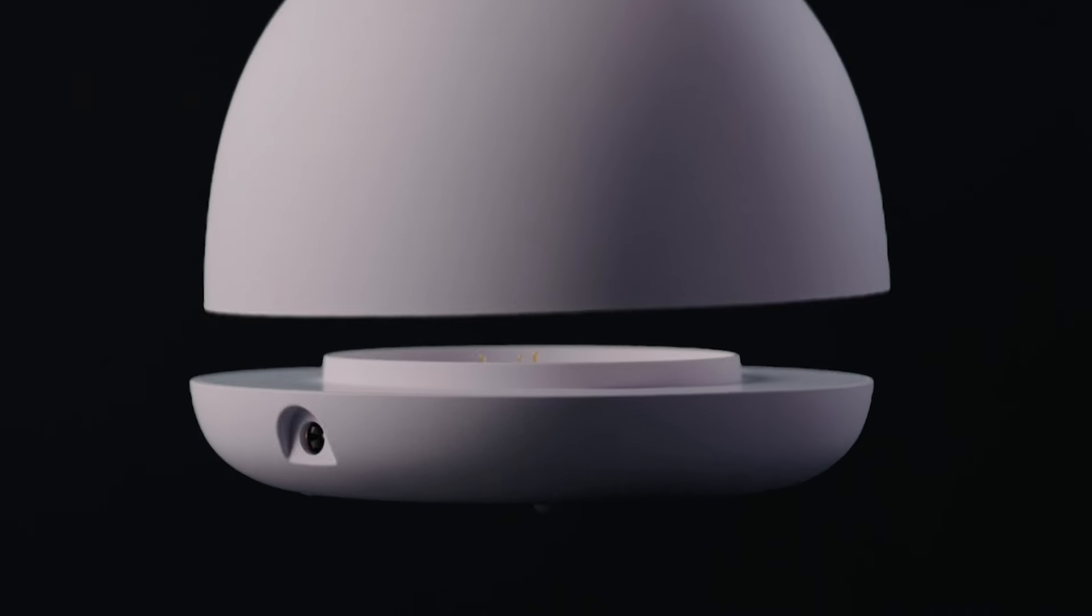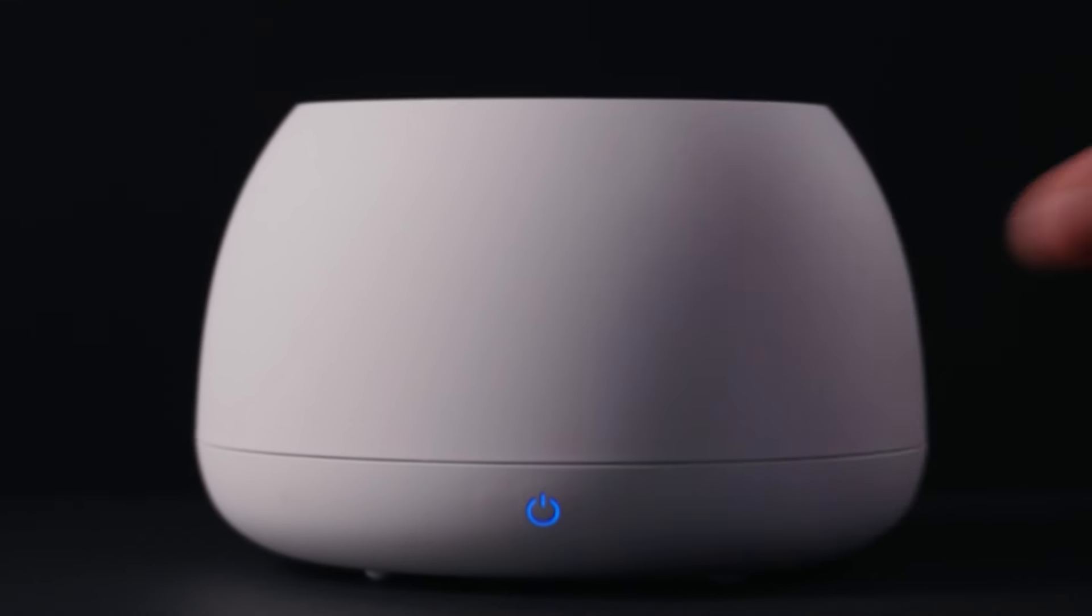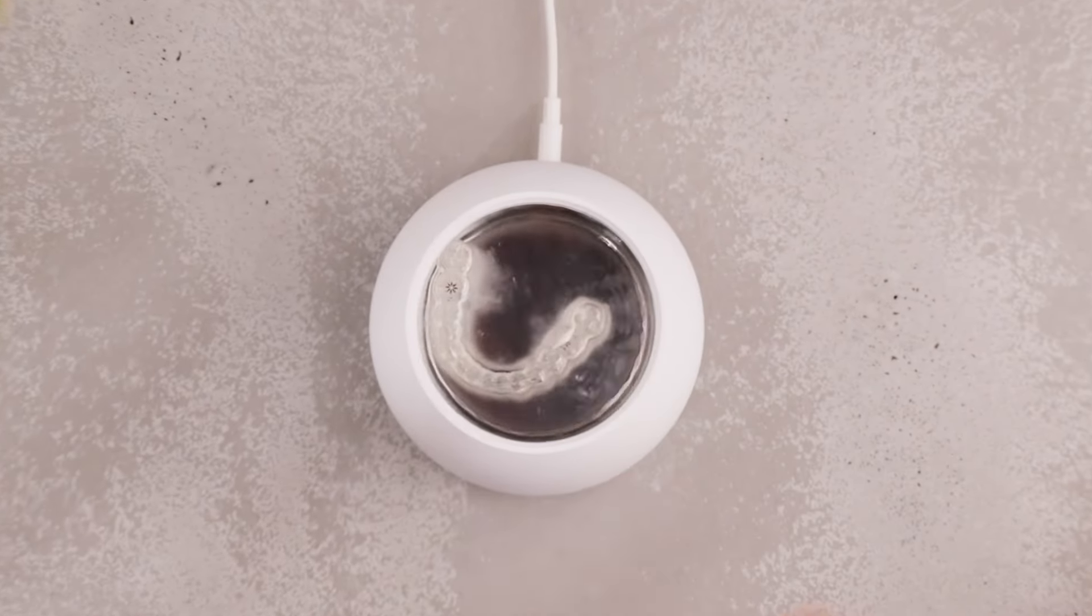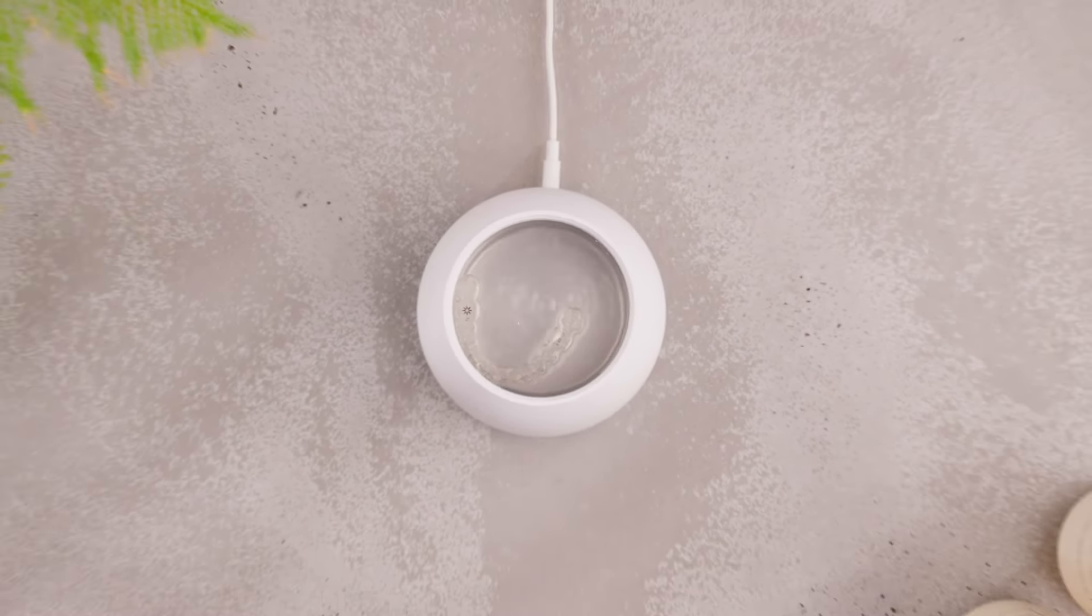Modular components, a removable tank made using an antibacterial steel alloy for ultimate ease of use. A secondary max clean mode, providing unparalleled cleaning performance for longer-term build-up, ensuring your appliance never negatively impacts your oral hygiene.